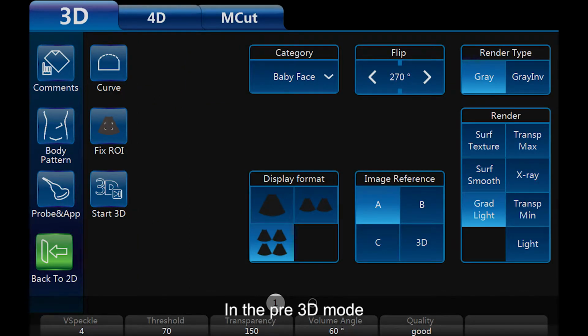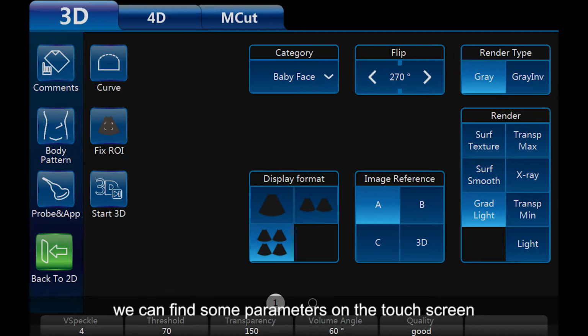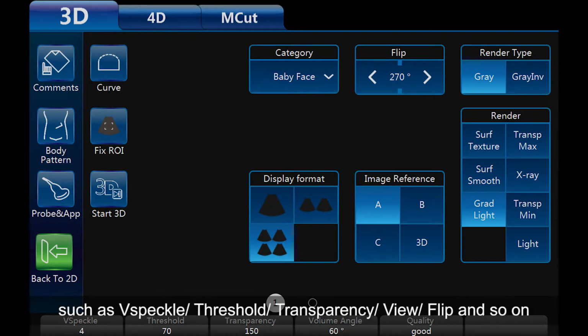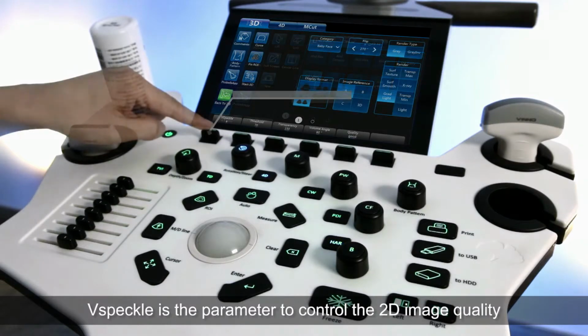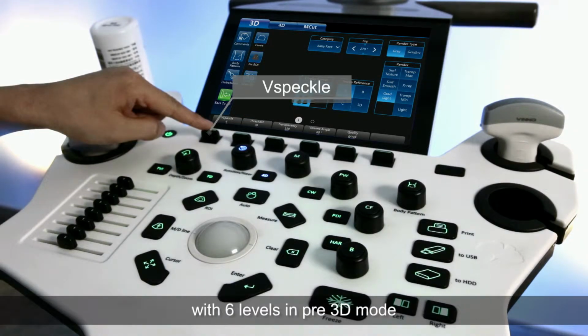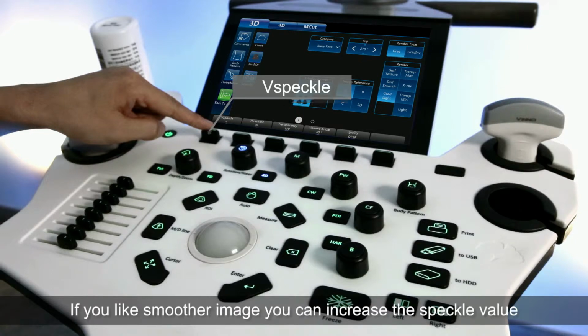System will enter into the pre-3D mode. In the pre-3D mode, we can find some parameters on the touchscreen such as V-speckle, threshold, transparency, view, flip, and so on. First of all, I want to introduce you all of these parameters. V-speckle is the parameter to control the 2D image quality with 6 levels in pre-3D mode. If you like smoother image, you can increase the speckle value. If you like more pixel image, you can decrease the speckle value.